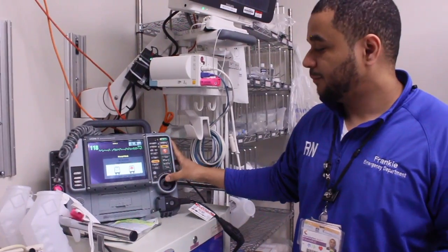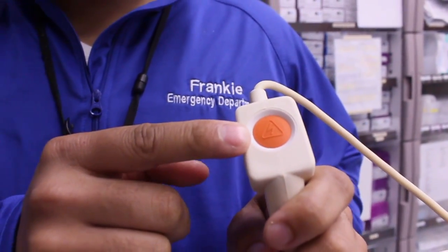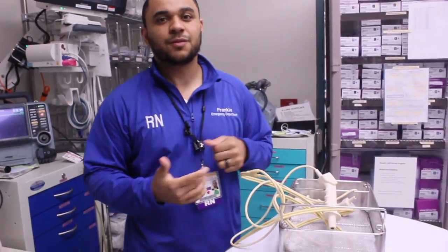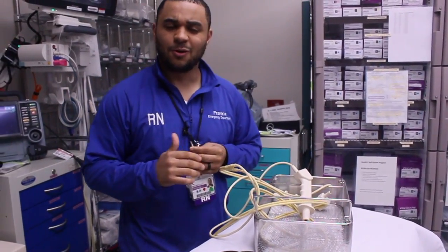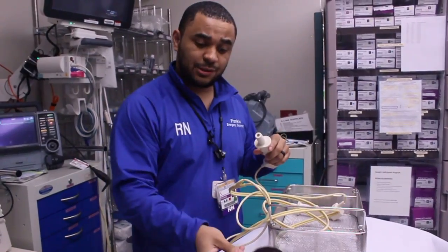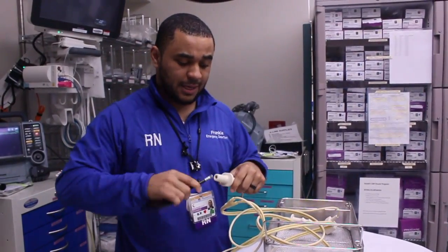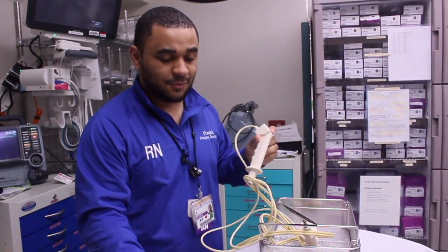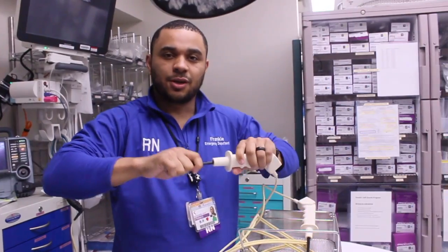It's also worth noting that you have to use the defibrillating button on the paddles themselves. The inside of the tray is sterile. Typically the physician handles this, but here's how you would apply or insert the paddles into the handles. We have the adult version and the pediatric version. For the adult version, you simply push and twist to secure. The pediatric version has a thread on it — you put it in and secure it in place.